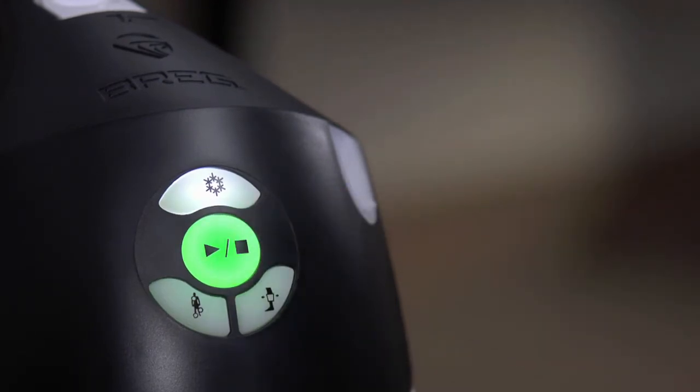If the unit is unplugged while running, you will need to plug it in again and press the center start stop button twice to restart the device. The device will remember which therapies were being used prior to shut off and continue with those therapies.